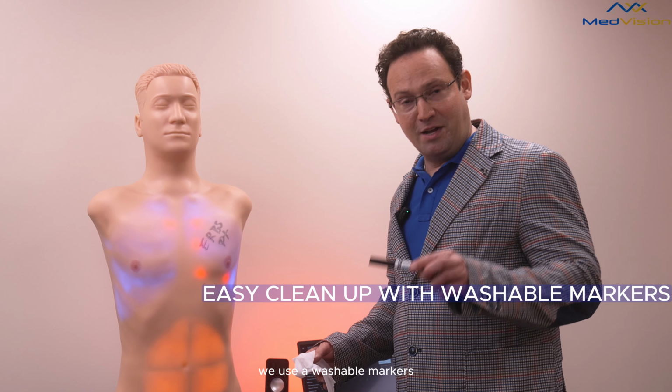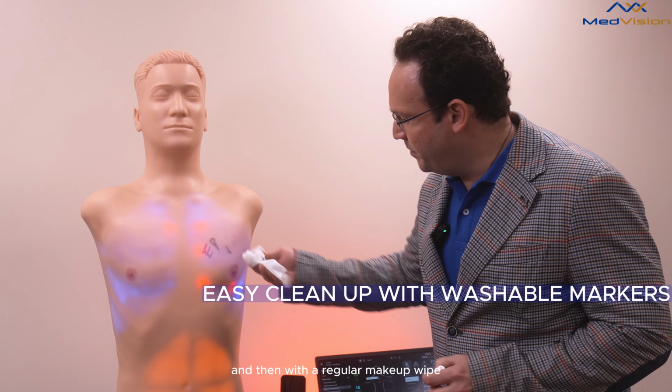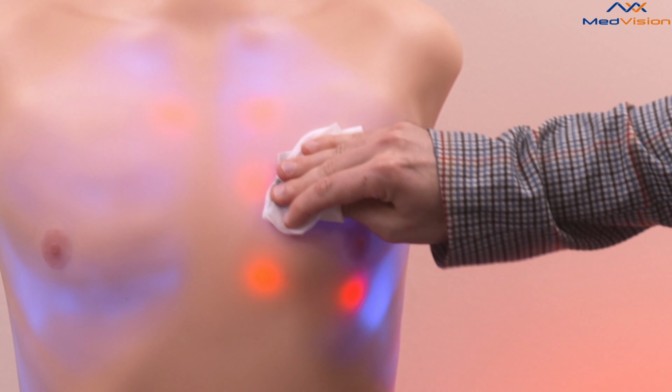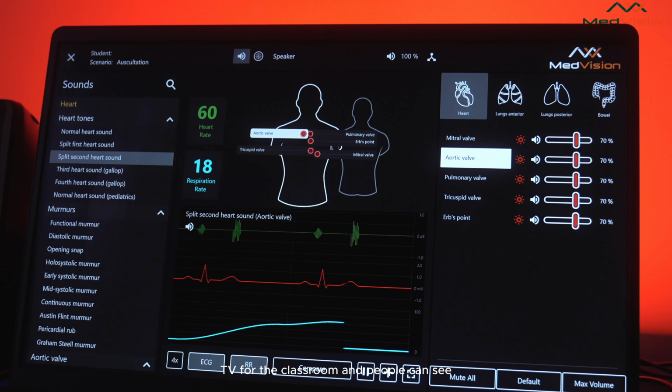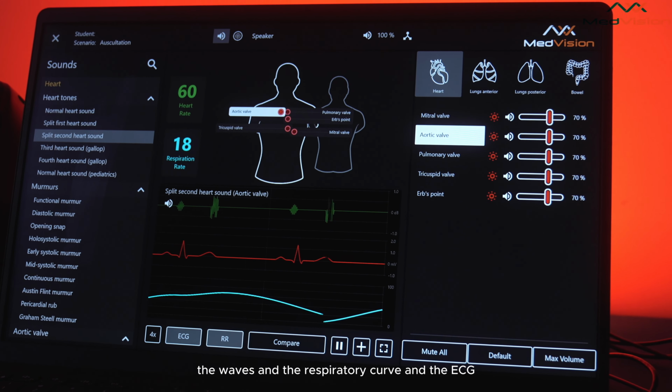Let me show you the easy cleanup. We use washable markers, and then with a regular makeup wipe, we could just wipe it right off, and it's clean again. You could also project the image here on HDMI to a TV for the classroom, and people can see the waves and the respiratory curve and the EKG.